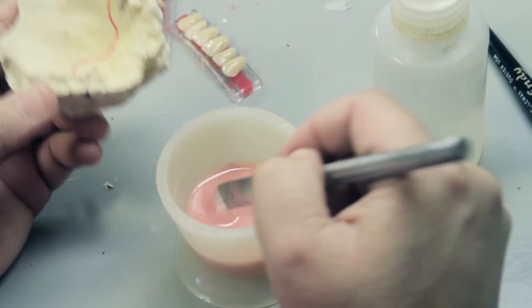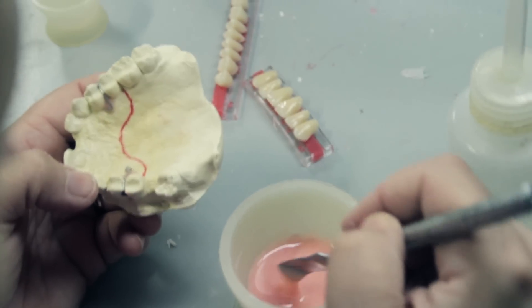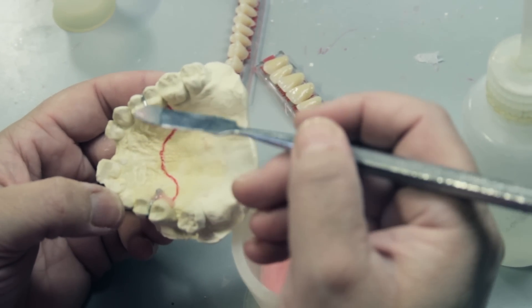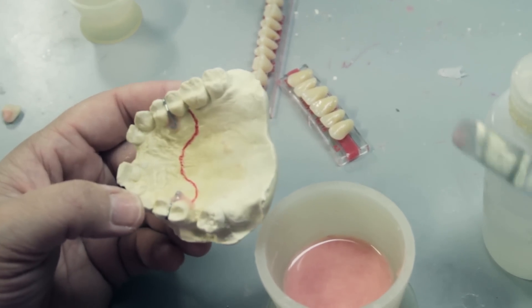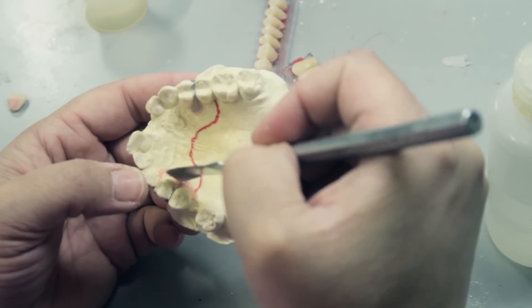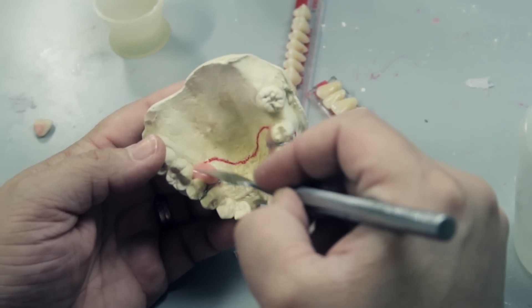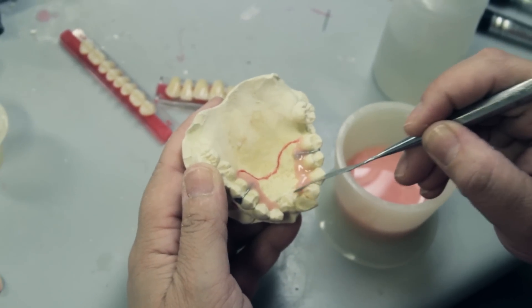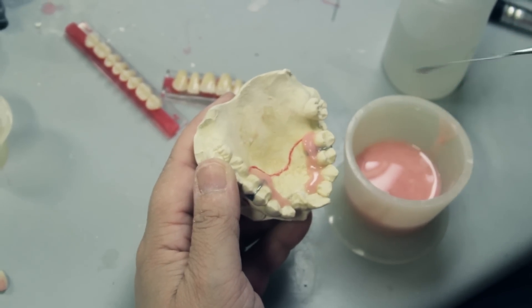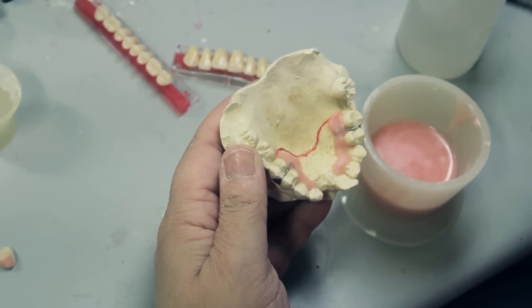I dabble acrylic onto the clasps. And I am going to now let the acrylic run through the inner proximals of each tooth. This also helps in the retention, or the staying in the mouth, which will give it its functional process. I continue to dabble my acrylic on both sides, letting the acrylic — as it's still in its somewhat flowing state — run to where I need it to go. I let the acrylic do the work for me.